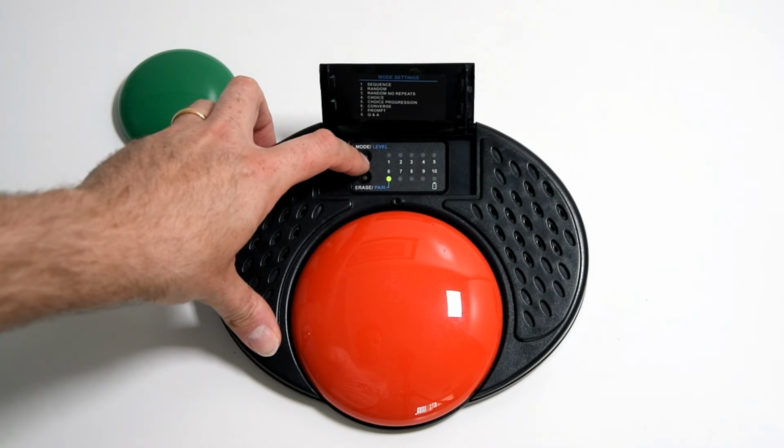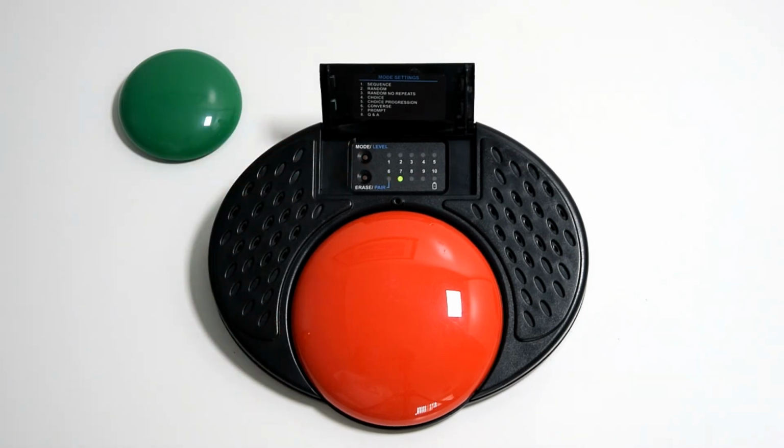So the next one to show you is auditory prompt, and that's number 7. Now, auditory prompt allows a teacher, caregiver or therapist, or anybody who's using this on behalf of somebody, to cycle through a list of messages to pick the correct one for someone. So how that works is you've got your set of messages recorded in.